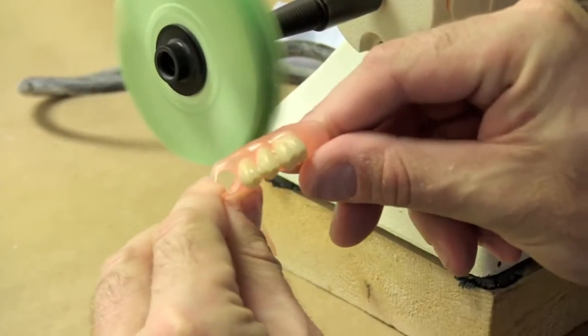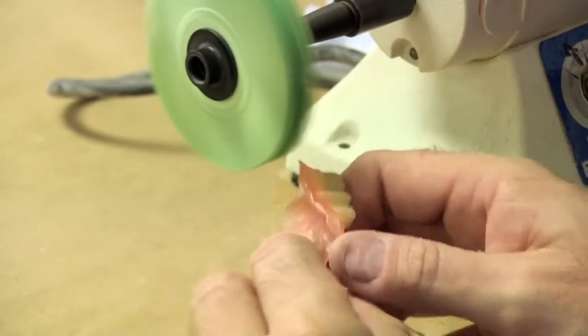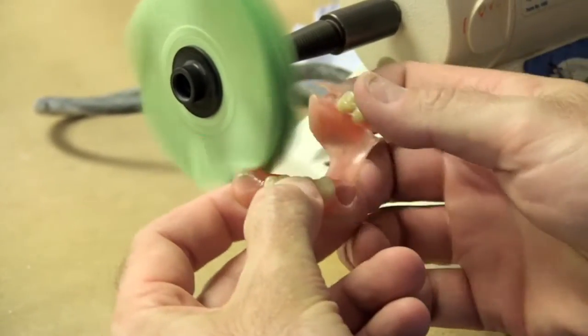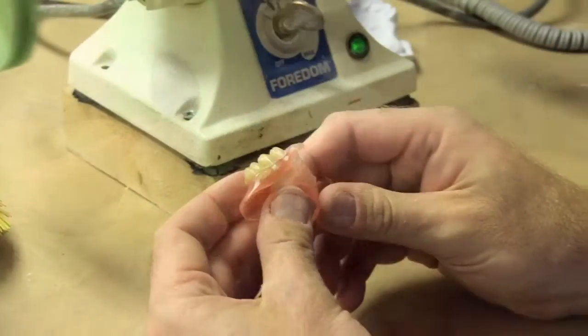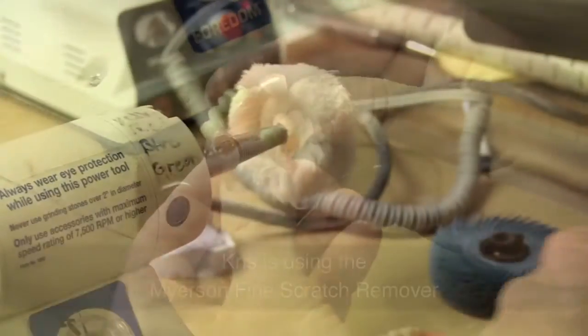And as I said at the start, you're actually going to have a bit of a shine happening with the green, but that's by no means what your high shine is going to look like. This is a good shine, but now watch what kind of shine the rag wheel gives it.